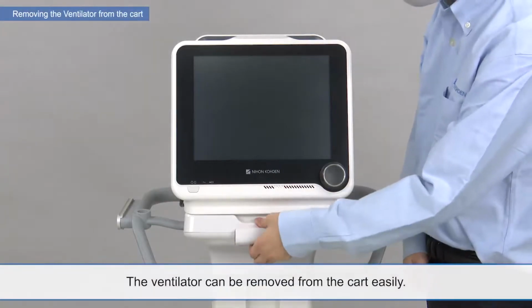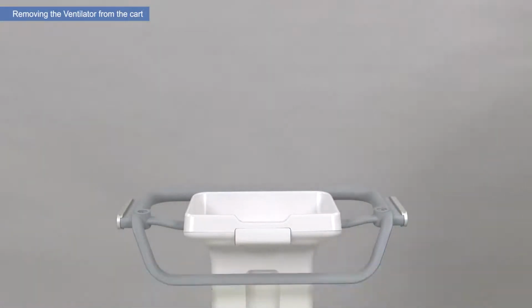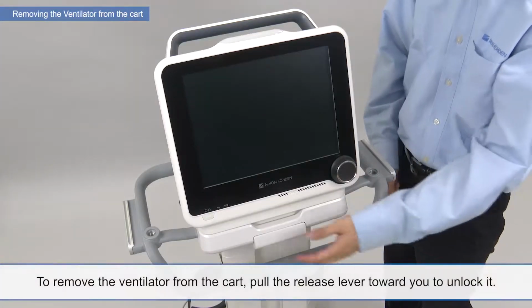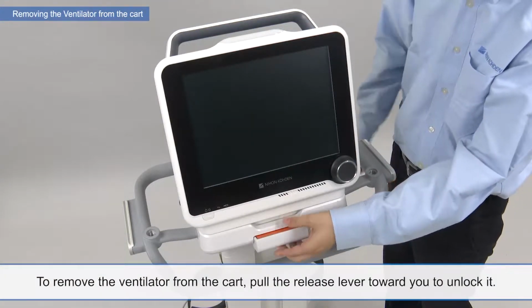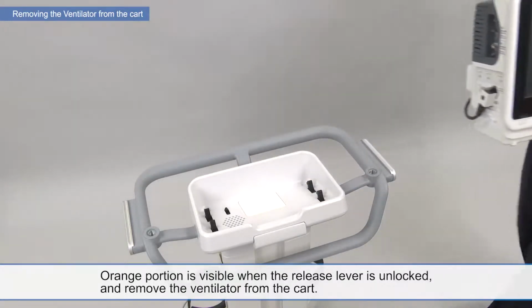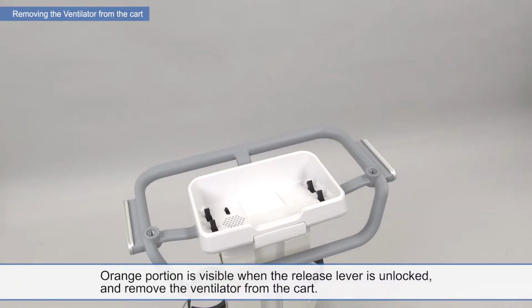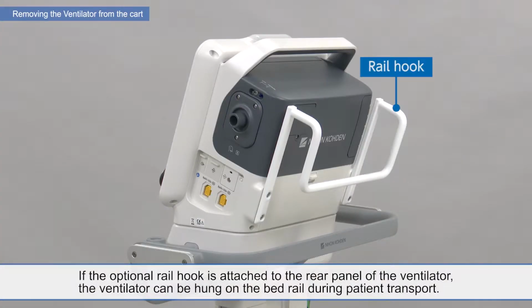The ventilator can be removed from the cart easily. To remove the ventilator from the cart, pull the release lever toward you to unlock it. The orange portion is visible when the release lever is unlocked. Then remove the ventilator from the cart. If the optional rail hook is attached to the rear panel, the ventilator can be hung on the bed rail during patient transport.